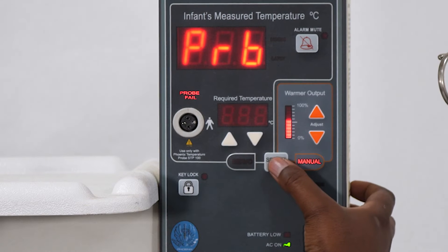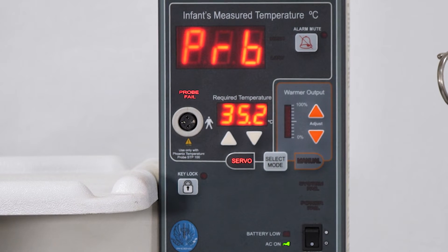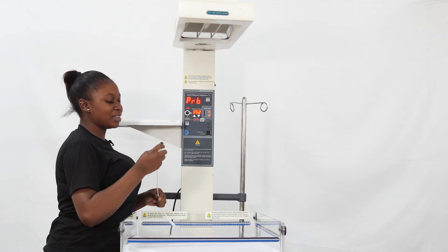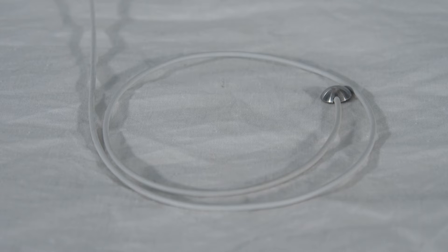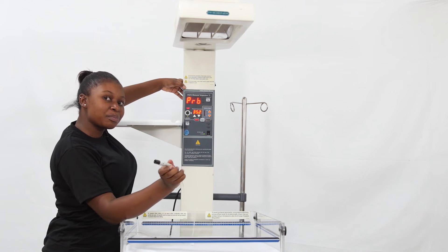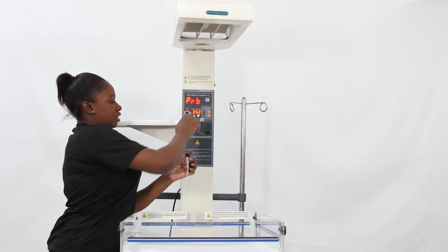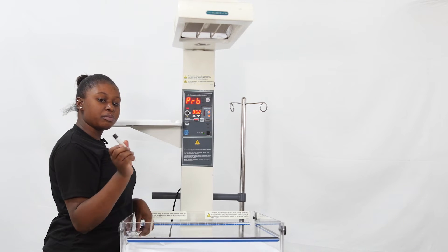On the select mode button — this is servo mode. There is an alarm telling me that I haven't connected my probe. I need to connect my probe first. When you plug in the probe, make sure that you line up the pins correctly. It is quite delicate and easily damaged.